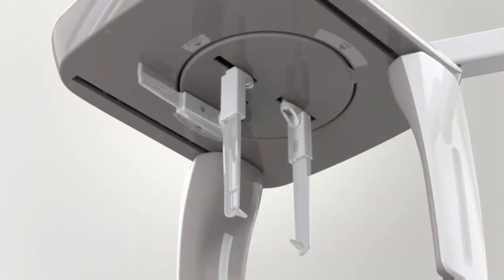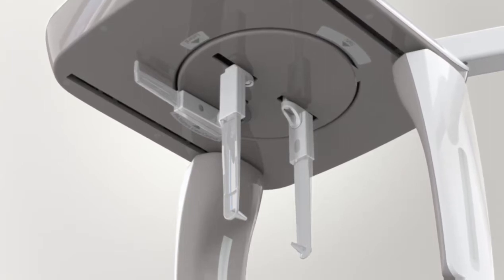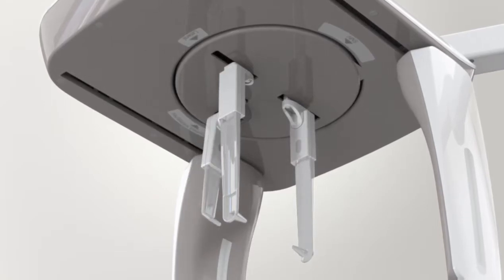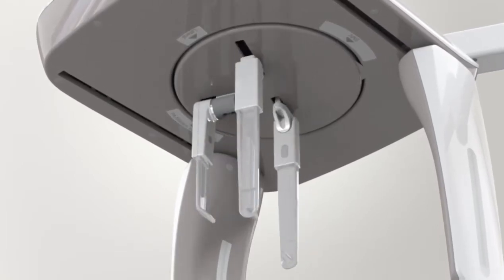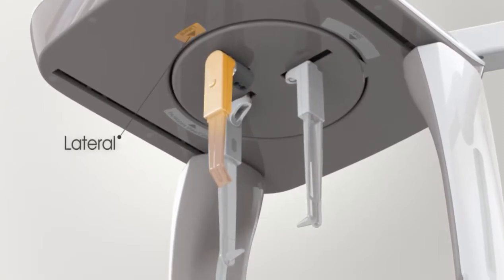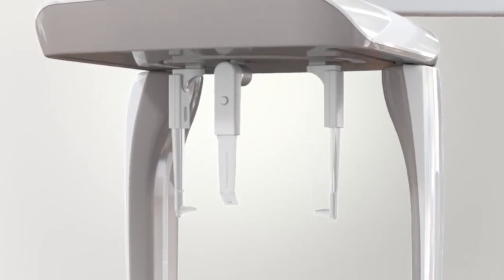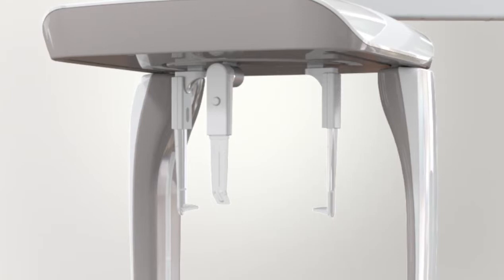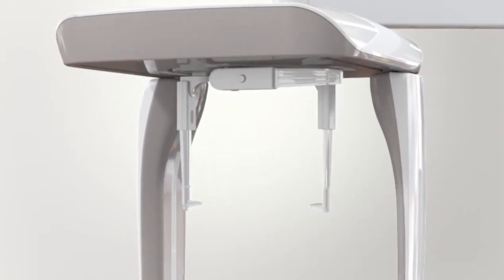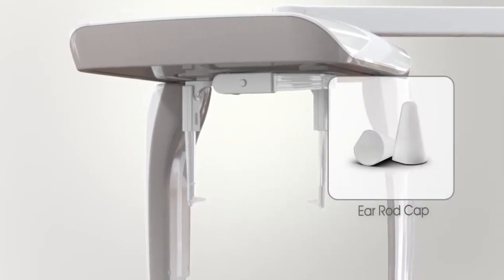To take the Ceph images of the lateral mode, you have to locate the ear rod and nasal positioner in proper position. Unfold the nasal positioner down and turn the ear rod to locate the lateral position. Leave enough space between the ear rods and move the nasal positioner out for patient's convenience. Fold the nasal positioner up. Cover a cap over the ear rod for patient safety.